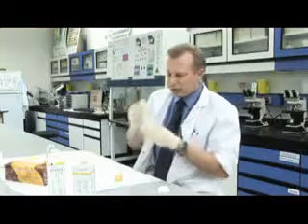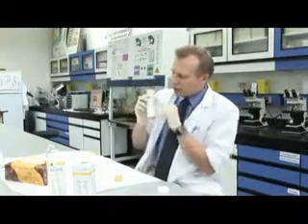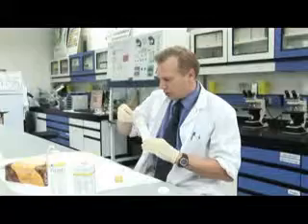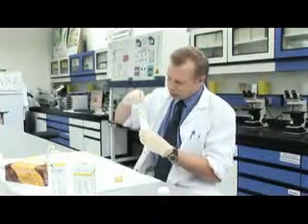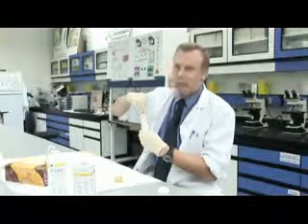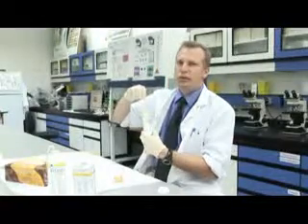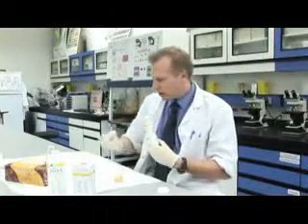And if we look on the side of the vial or the container that these strips come in, it gives us a reference colour range. So normally if we take a non-reacted strip, it looks like this, and then the colour will change and we hold it this way against the different colours. So when we get a colour match, we can say if there's been a positive result, and it also gives us rough ranges or concentrations for the different chemicals found in urine, so we can make a diagnosis.